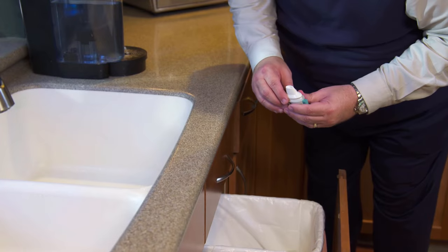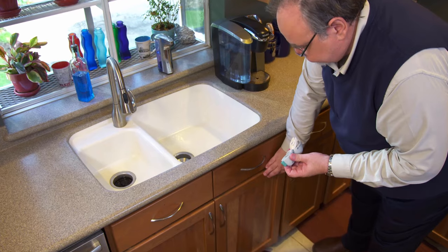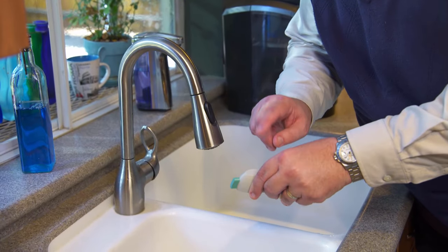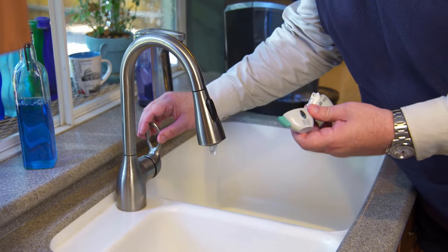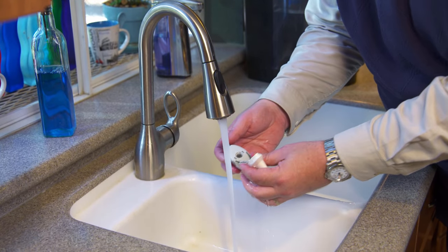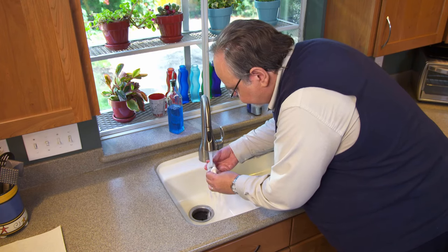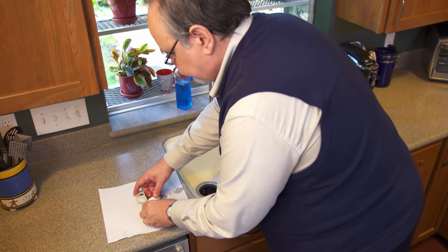The only thing left to do is clean the HandiHaler. Look to see if there are remaining capsule pieces or a buildup of powder. If you see any, turn the device over and tap it gently to remove them. Then rinse the whole thing with water — while rinsing, push the green button a few times. Don't put the HandiHaler device in the dishwasher. Let the HandiHaler air dry overnight, leaving the dust cap, mouthpiece, and base open.